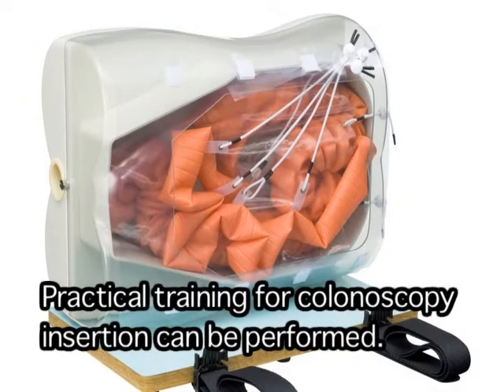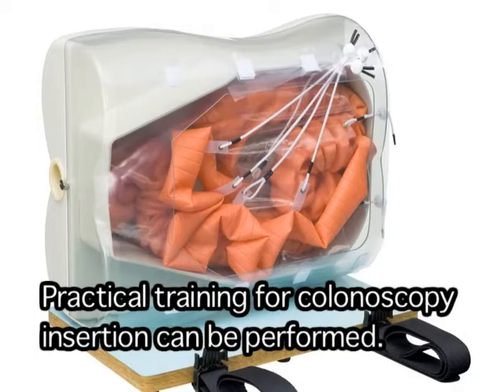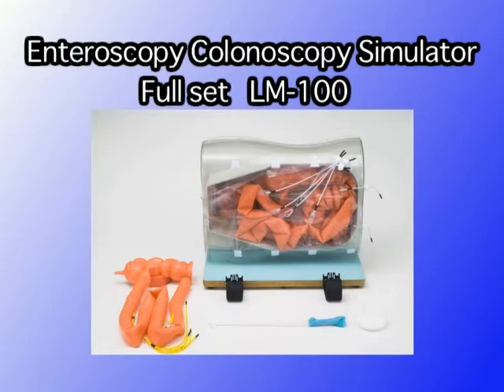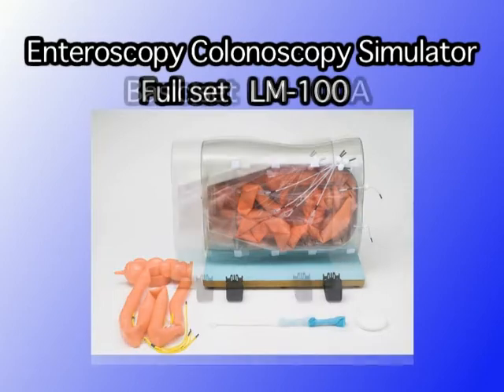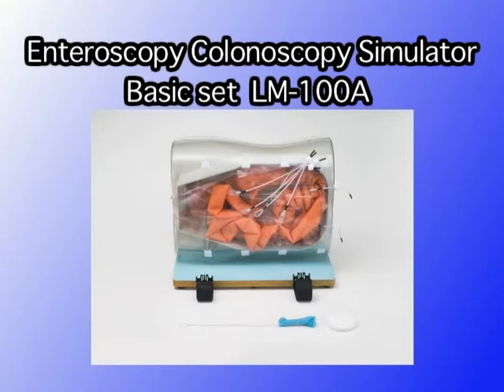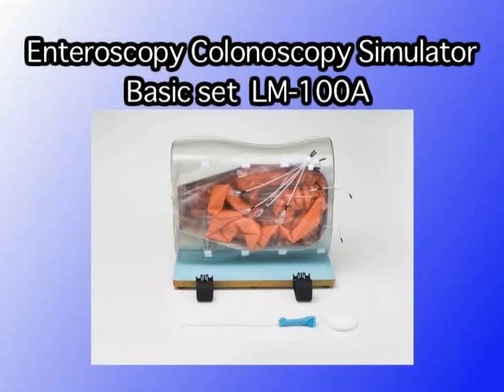This model can also be used for practical training for colonoscopy insertion. With the development of balloon endoscopy, opportunities for performing enteroscopic examinations are increasing. Although balloon endoscopy is not an especially difficult procedure, there are differences with conventional endoscopic manipulations, and the operator needs to become familiar with device settings, manipulation methods, and insertion techniques. Using the Enteroscopy Colonoscopy Simulator, operators can familiarize themselves with balloon endoscopy techniques and perform enteroscopic examinations with confidence.